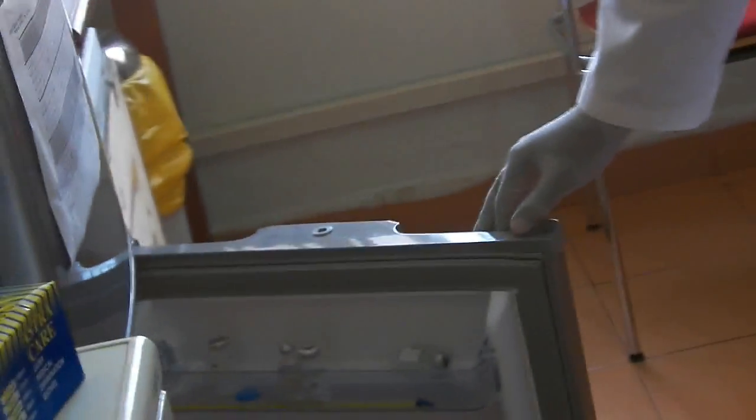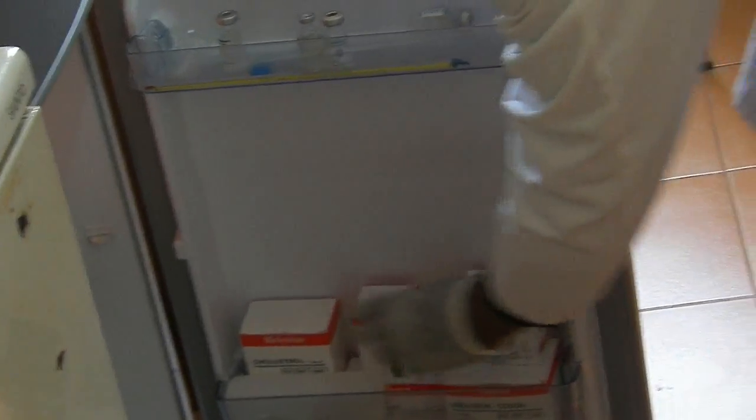So here, first you'll have to take out your reagent from the fridge. This is the triglycerides reagent. I hope you can see this — this is triglycerides here.